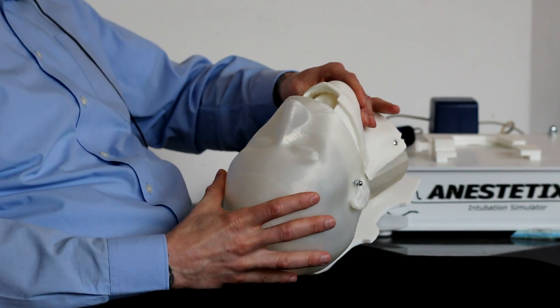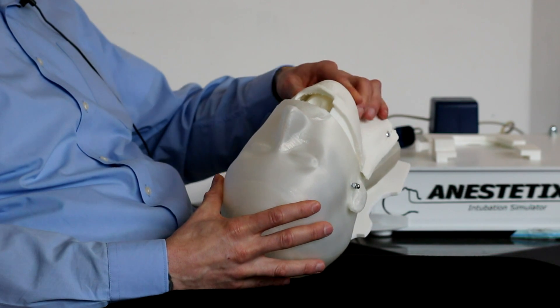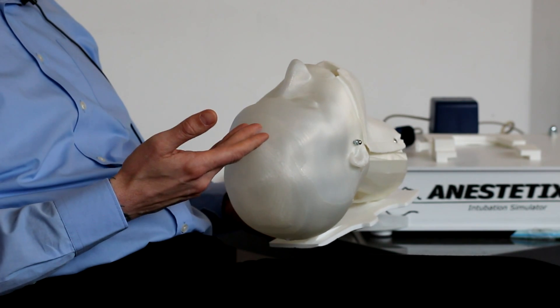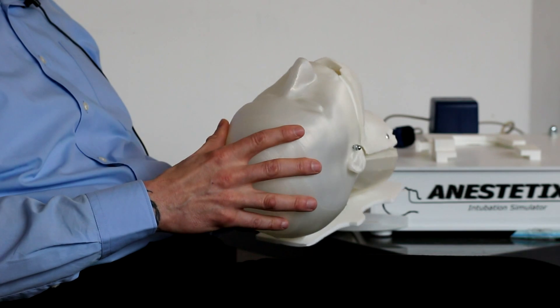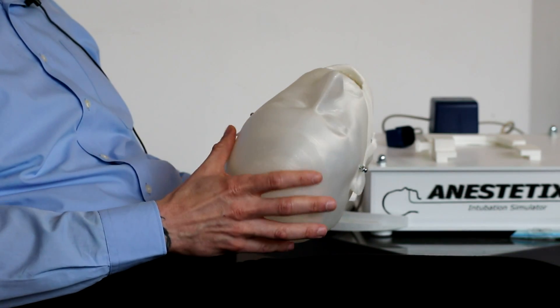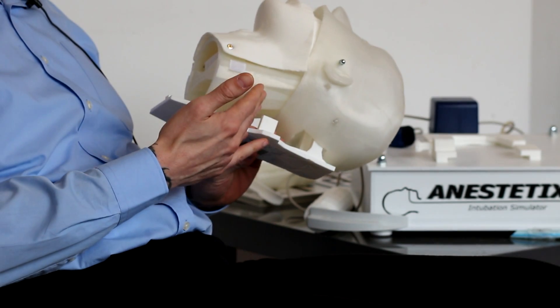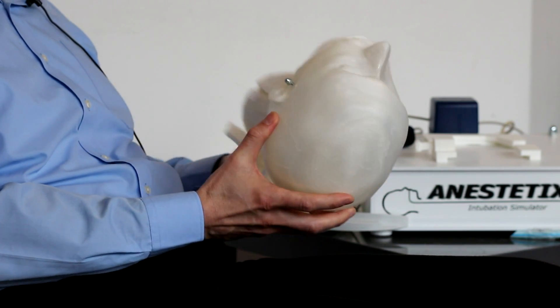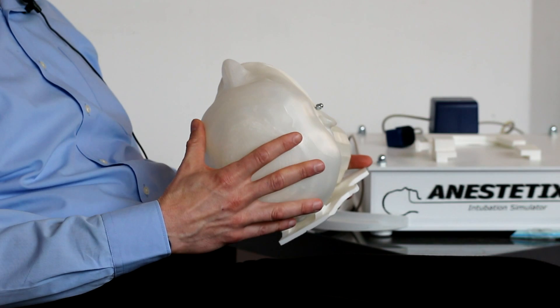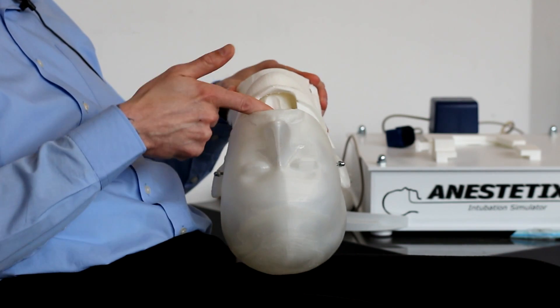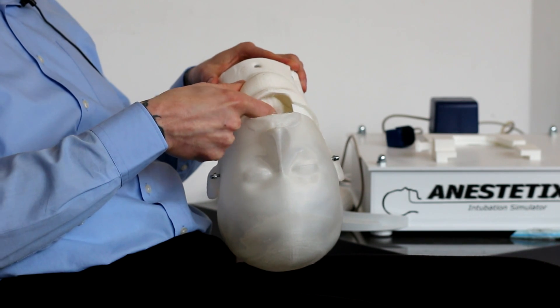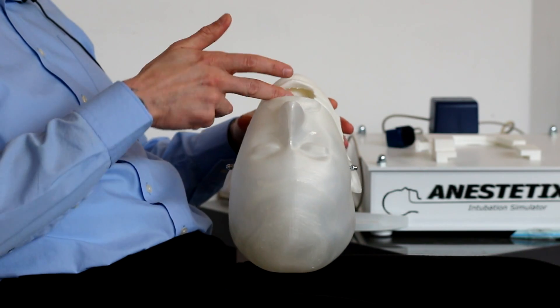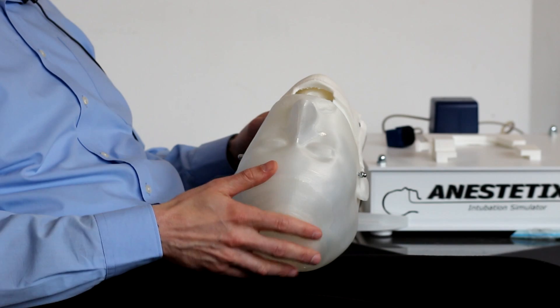I have used a soft material here, a TPE material for the jaw and I have used ordinary PLA plastic for the upper part of the head. As you see after a few iterations of design this head structure is closed, easy to assemble and it's also very robust. Inside you have a soft tongue which is easy to press and myself and even users obviously feel that the feeling of this head is quite realistic.